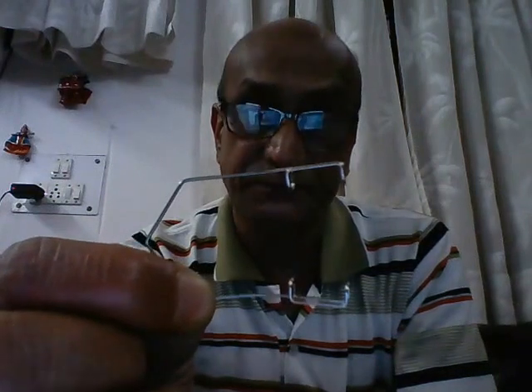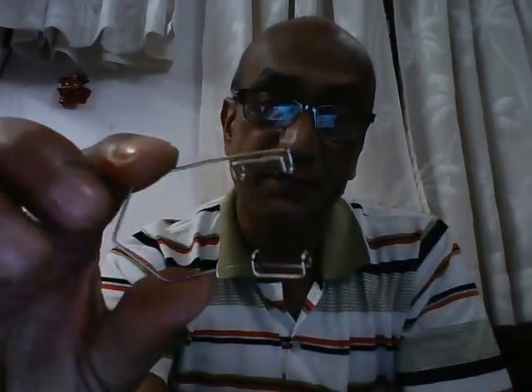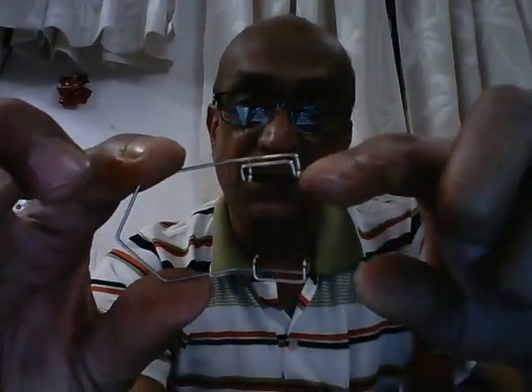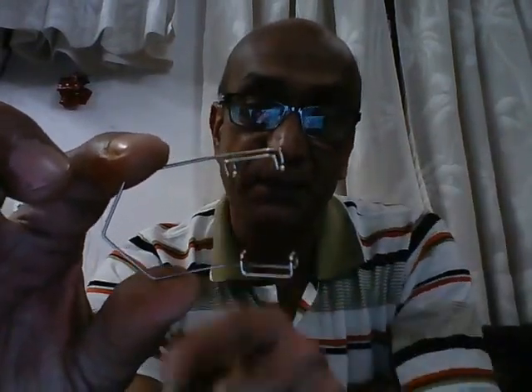This is the 14 millimeter adult size, meaning the separation between this end and this end is 14 millimeters, which approximately corresponds to the length of the eyelid. The unique feature about this is that the width of separation is constant — the width of separation cannot be adjusted.